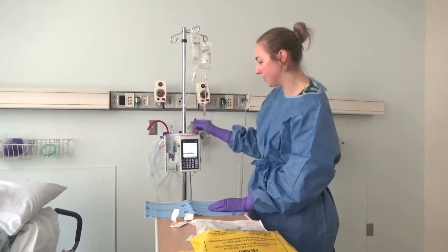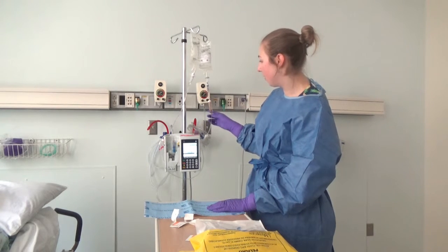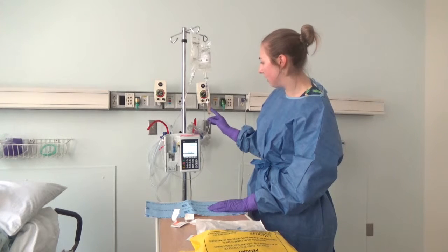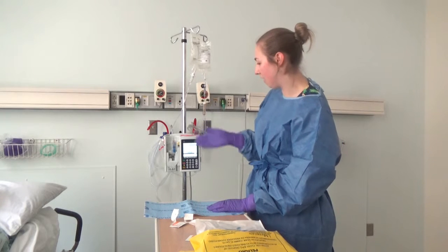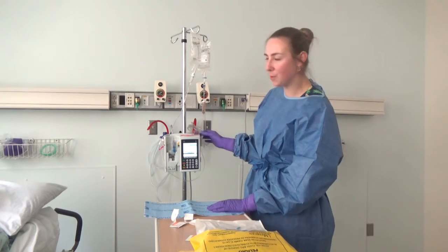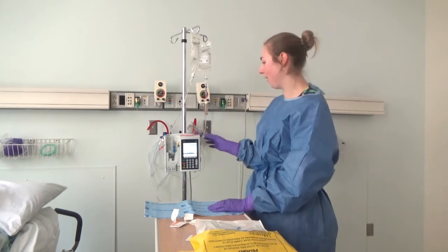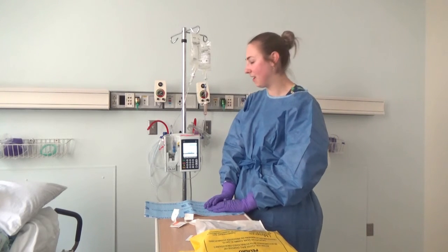Not programming the A line at this point. Make sure that the chemotherapy is dripping in that drip chamber in the B line — make sure it's running. Sometimes with a slower rate it takes a little bit longer. There it goes. Now we know our chemo is running, and we're all set.